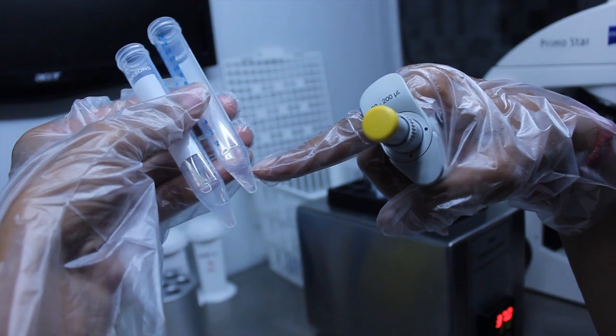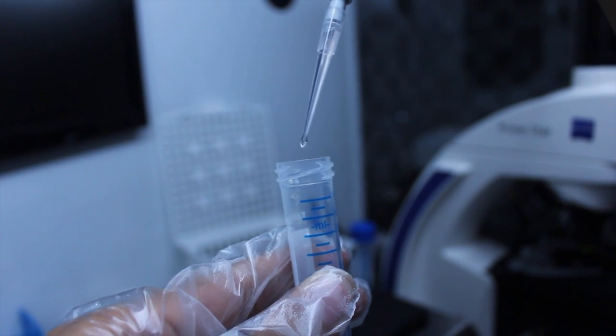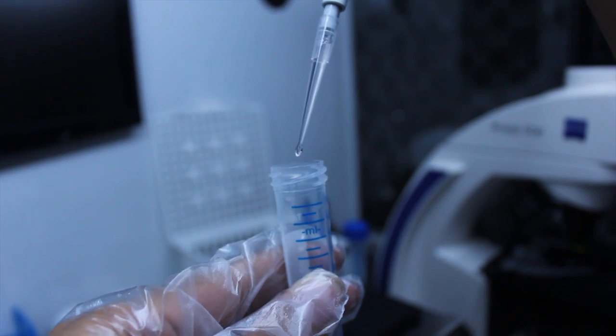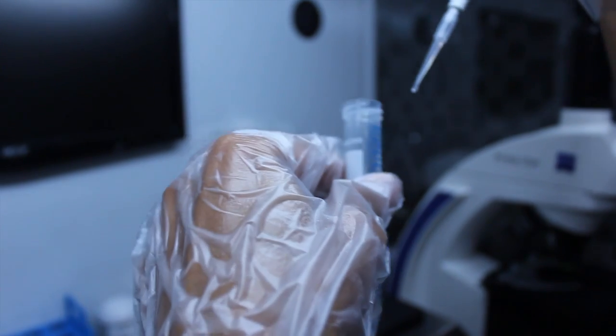The freezing media is then added drop-wise over the pellet. The sample needs to be stirred regularly for equal mixing of the sample along with the freezing media.